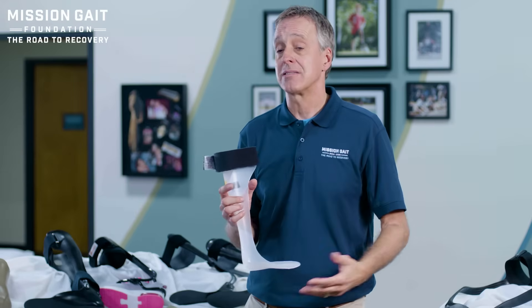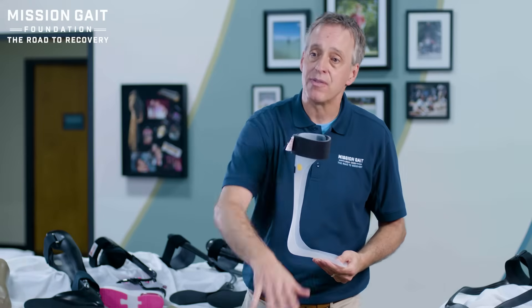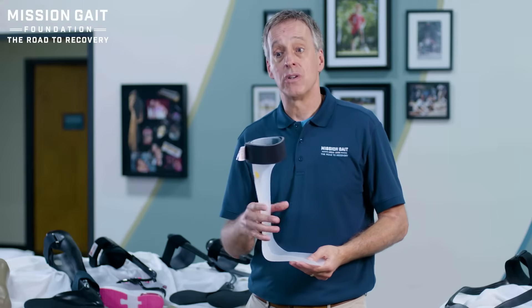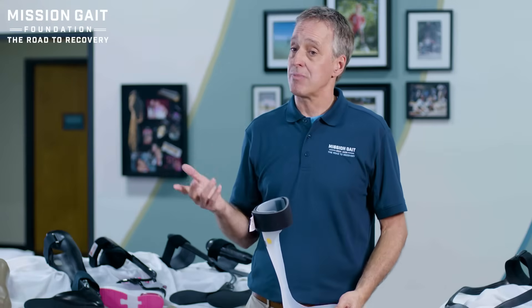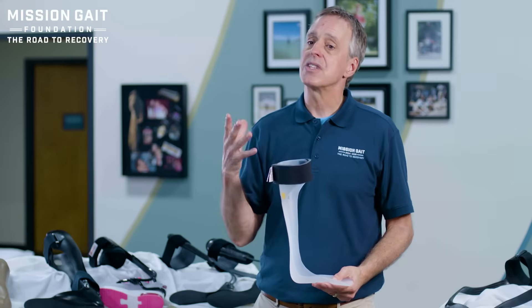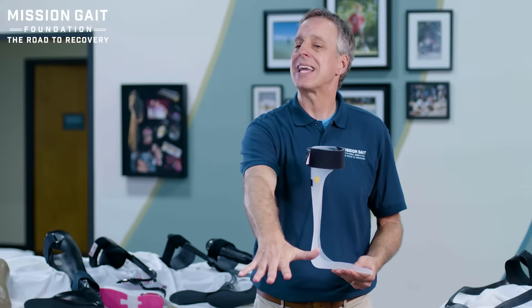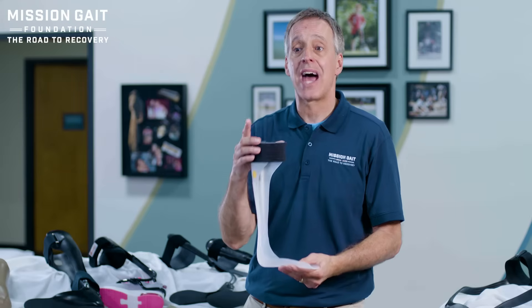Number two: do you have associated weakness? Not only can you not lift your foot up, but you're also weak in your calf — you can't push your foot down or lift your foot to the outside. Number three is tone: do you have a tone issue? That means some sort of central injury — could be a traumatic brain injury, a stroke, or other disease factors affecting the brain — giving you tone, where there's also a force pointing that foot down and putting the leg into an extensor pattern.